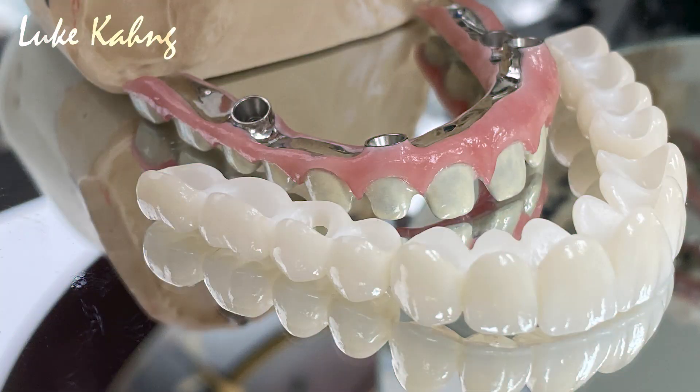I don't like acrylic dentures because you get a lot of staining and smell — especially a problem if you're dating, right? So we made ceramic on top and cemented it together to make one bridge. This video is short but it's a great experience. I'd like to share it with my colleagues — dental laboratory technicians — so they can see this video and avoid future problems, or discuss with the doctor. Most of the time doctors don't know what to do. Talk to the patient about longevity and aesthetics, not just money.